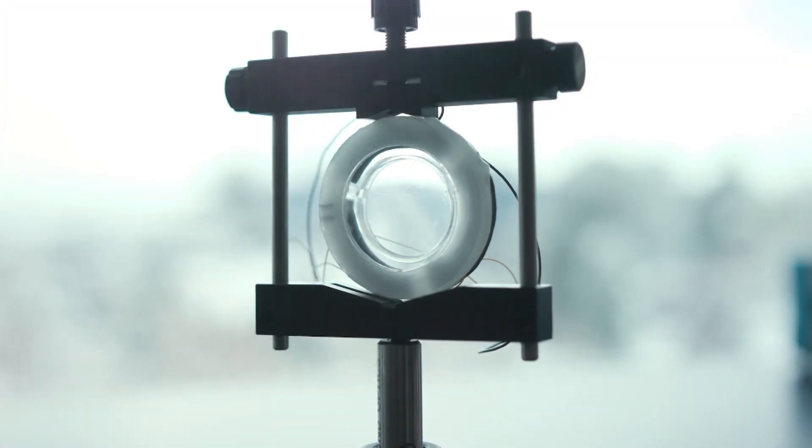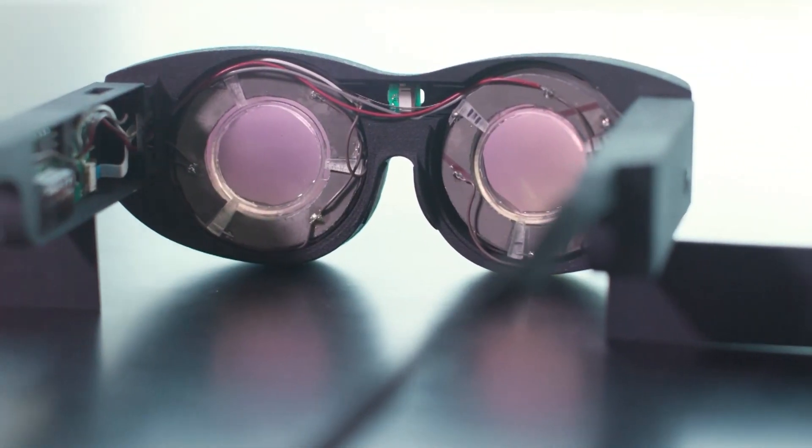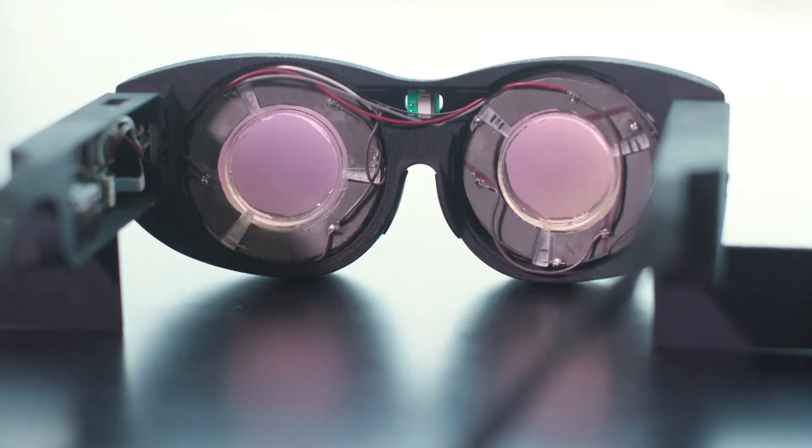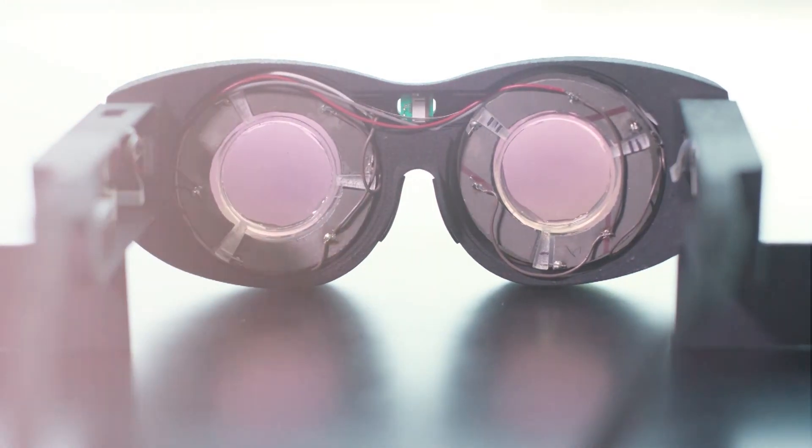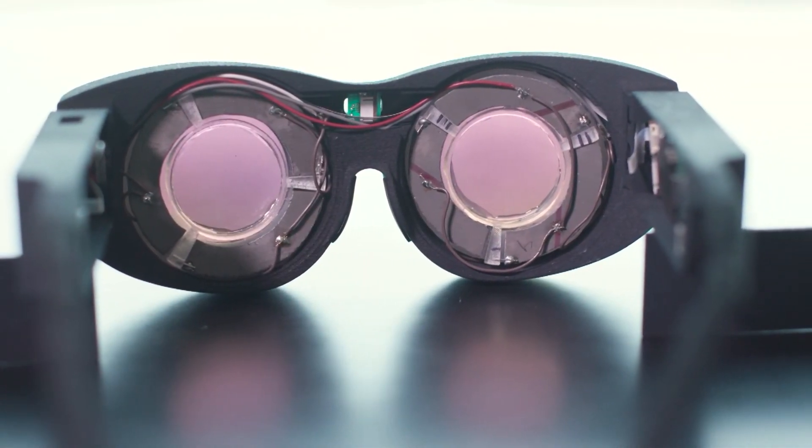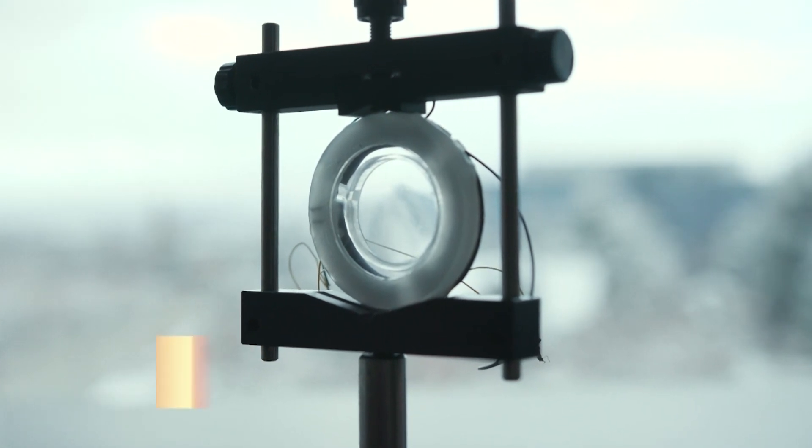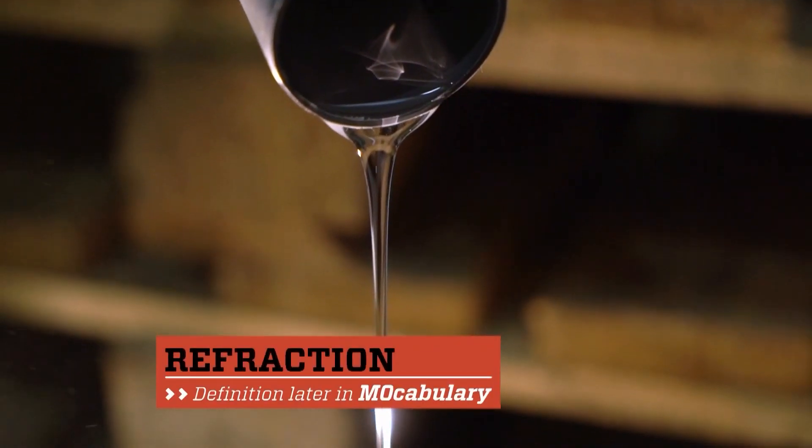I decided to develop these liquid lenses. They look like regular spectacle glasses, but they are not solid. They are more like a bladder with a fluid inside. It's a liquid which is perfectly clear, so you can see through, you don't lose your light. And a fluid that has a high index of refraction, so we ended up using glycerin.